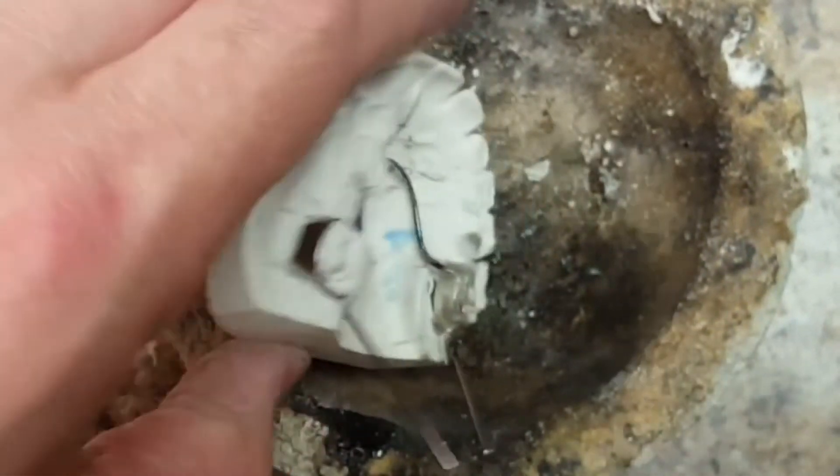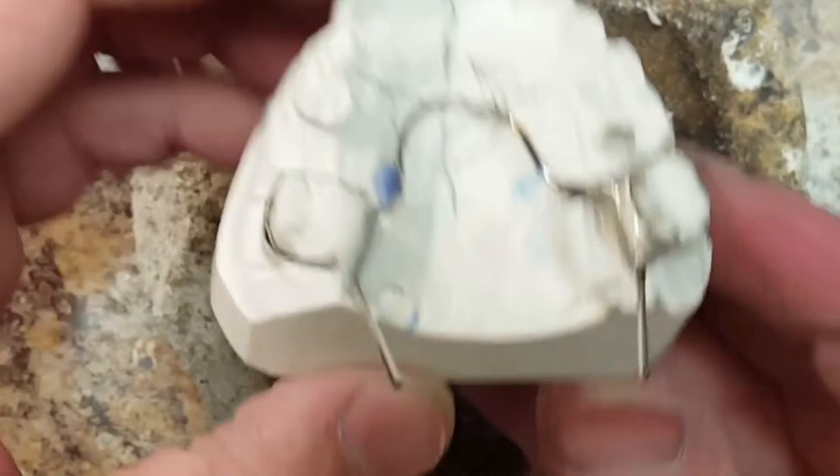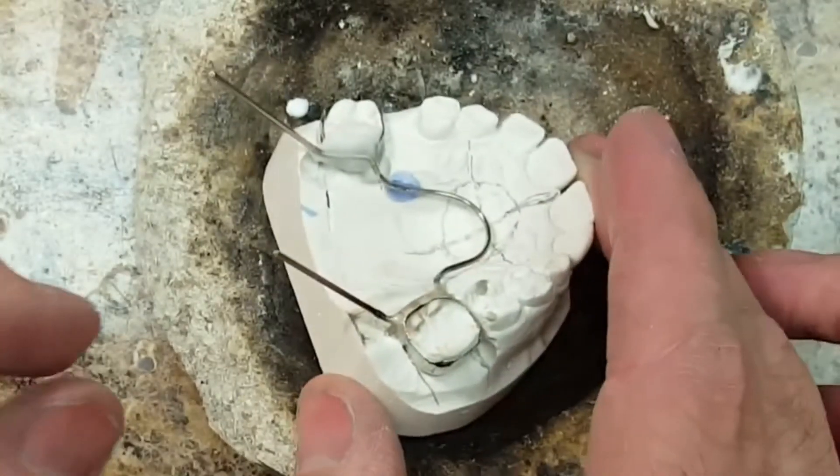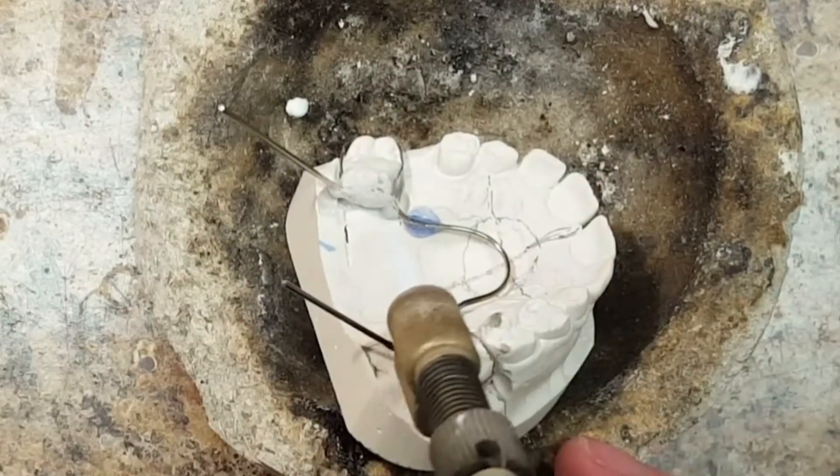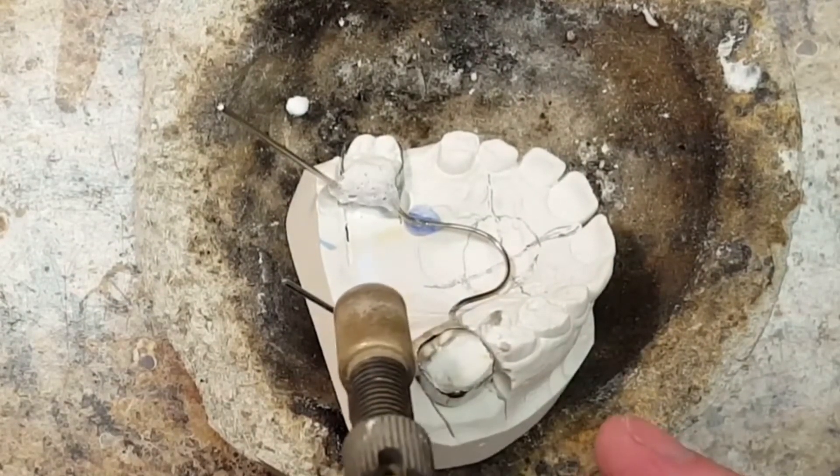Now for this procedure I'm doing a little bit extra — I kind of paint the flame on it. That's what I'm doing, just to help the solder joint flow a little bit better.